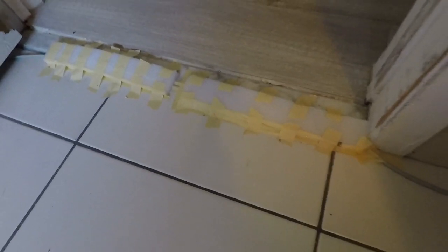The first example is right here in my room, getting out of my room. At my door I put this styrofoam to protect this Ethernet wire and tape. Without it, you could go up the little step without doing a wheelie, but I'm pretty sure it's not good for the front wheels — the casters and all the moving parts inside — so I always go up it in a wheelie.